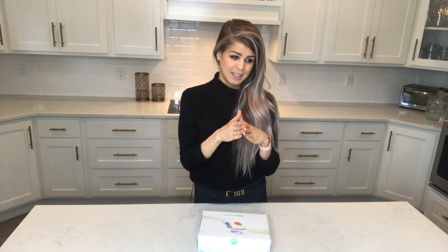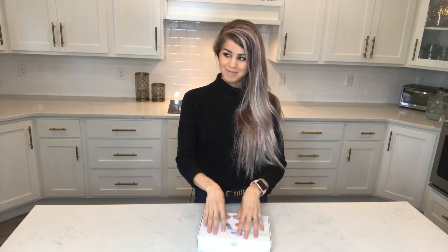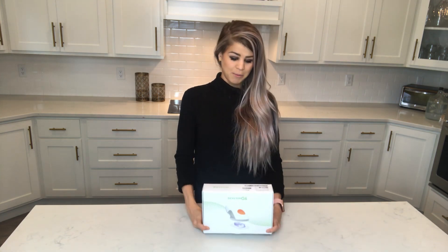Two hours later you're going to get readings and you should get an additional 10 days. It depends on the person — if you're more controlled you should get more days, possibly the full 10 days. But if your levels are varying, you might not get the full 10 days, but try it and tell me what you think. I'll also be talking about looping soon — it's fantastic. Have a wonderful day. If you like written out instructions, you can visit my website and you can work with me if you need help with your diabetes.